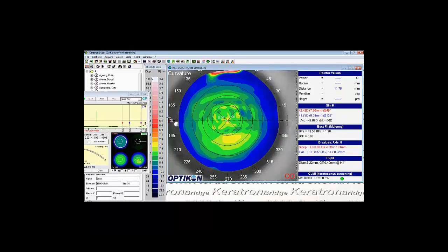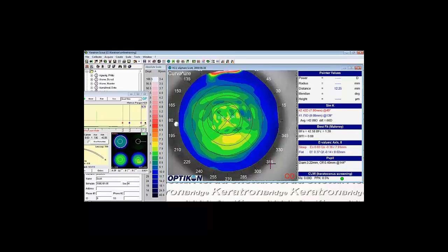In this case we don't have full access because the topography went off screen a little bit, but if we get a general idea here, I'm showing a measurement of about 11.78. When I don't have full ability to get the horizontal, I will grab an oblique just to give us an idea. So we're at about 12.2 there. It's safe to assume this cornea is about 12mm, and we can decide from there how large you want to make the contact lens.